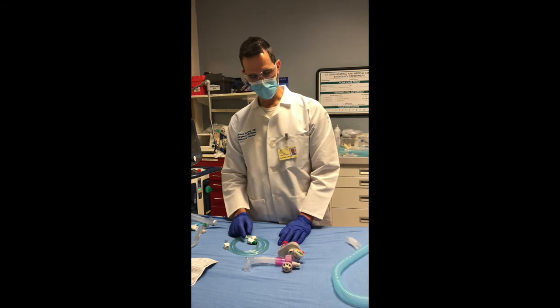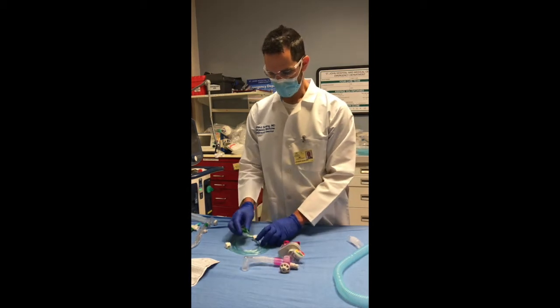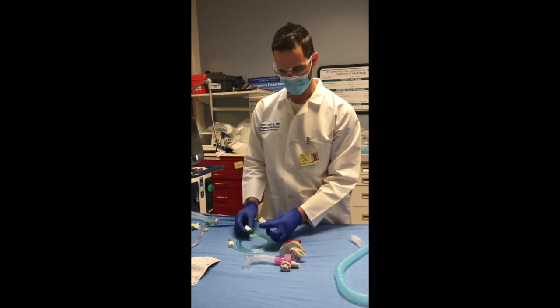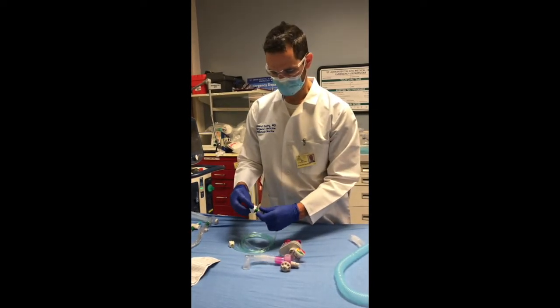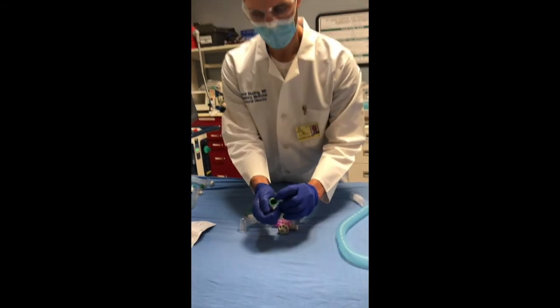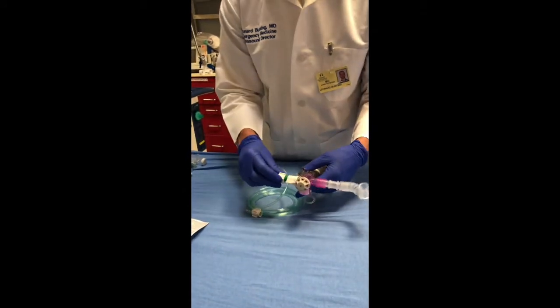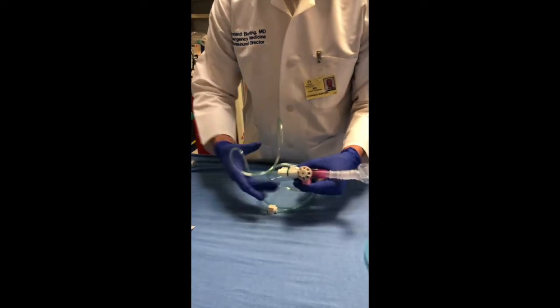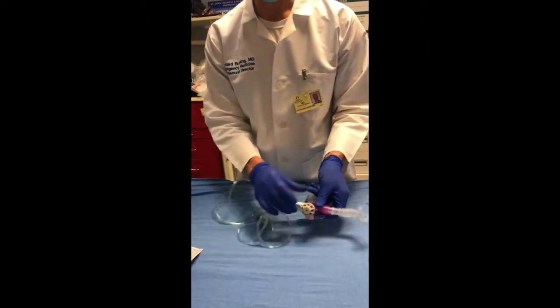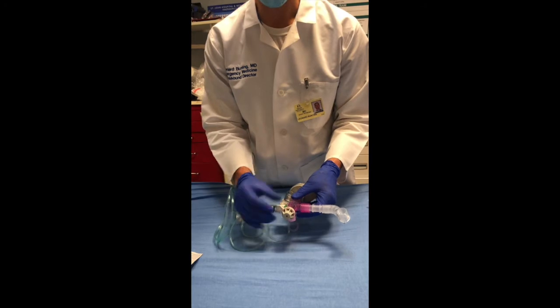The first connection you will make is to connect your oxygen to your ventilator. If you want 100% FiO2, you're going to connect your green cap to your oxygen tubing first. Note that these are delicate connectors — the caps are delicate, and when you screw them onto the Vortran you want to be cautious not to over-tighten them. Just finger tight, just snug. It doesn't have to be overly tight — all it's doing is covering up those extra ports.